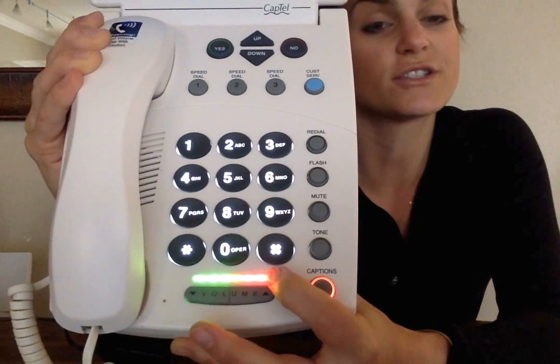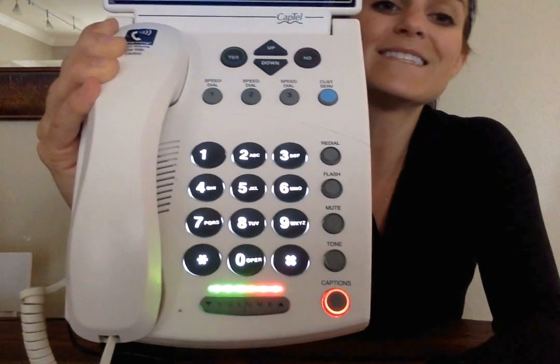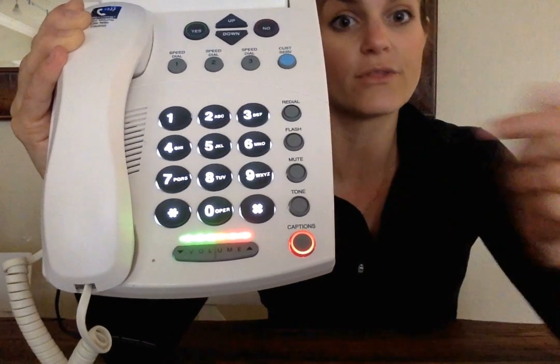It turns to red. It goes from kind of an orange to a red. That's signaling that the phone is going to be louder. So that's for everyone else in your house who goes to grab the phone so that they know just how loud the phone is about to be.